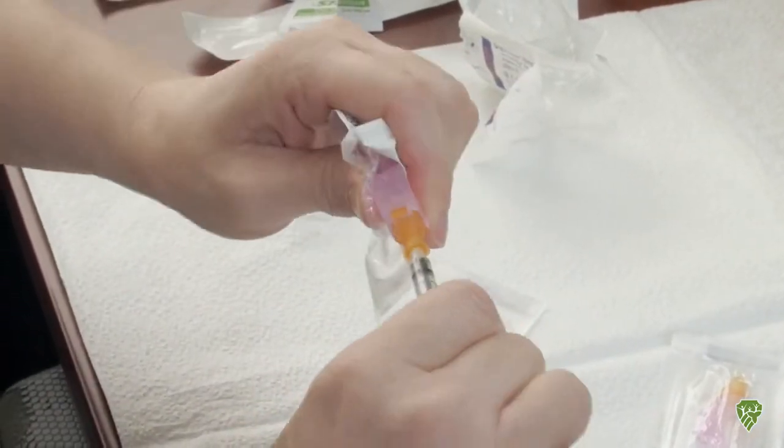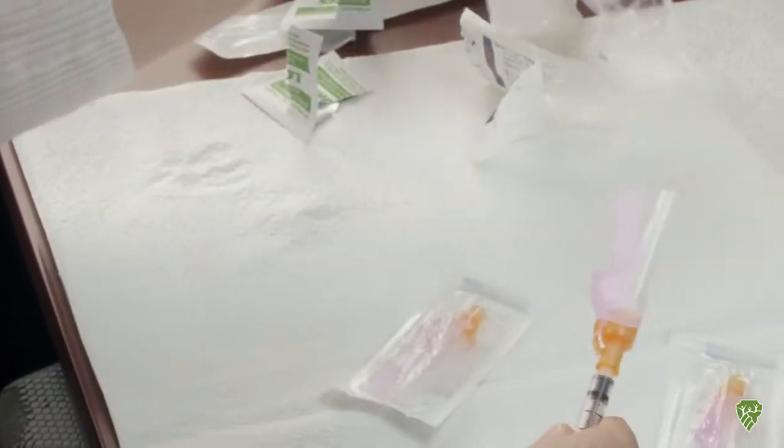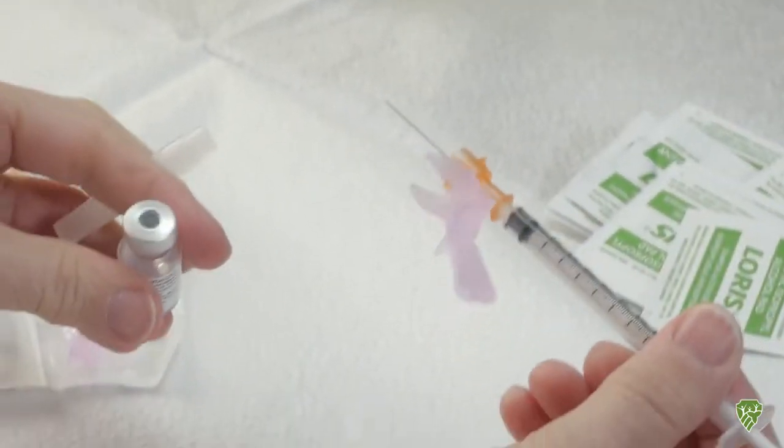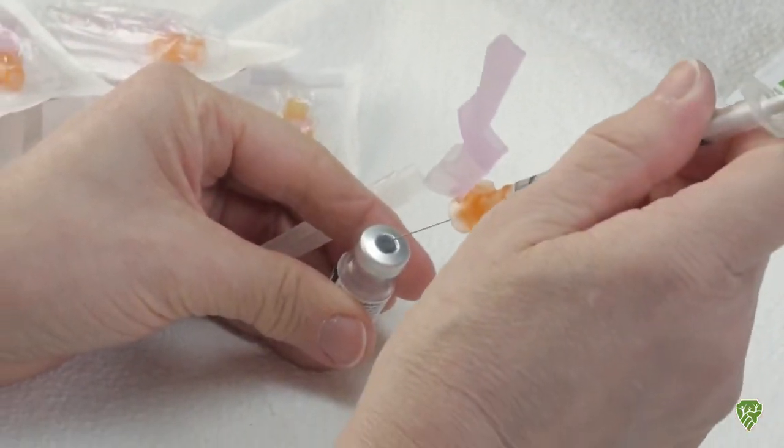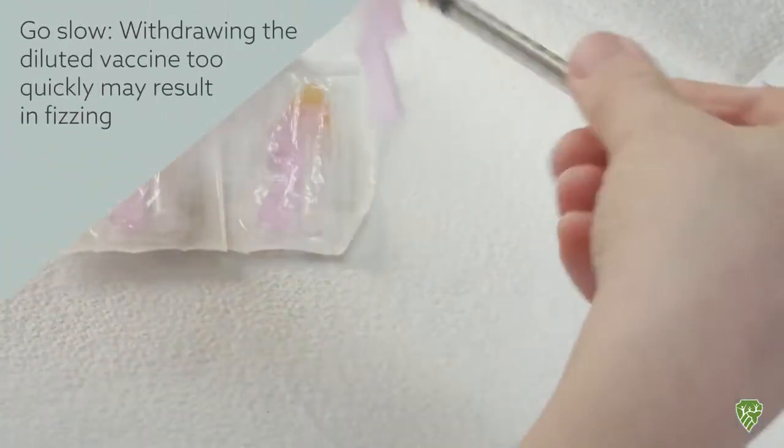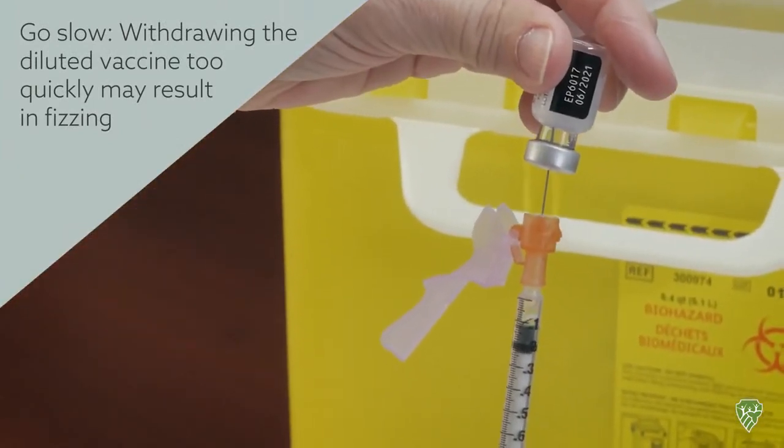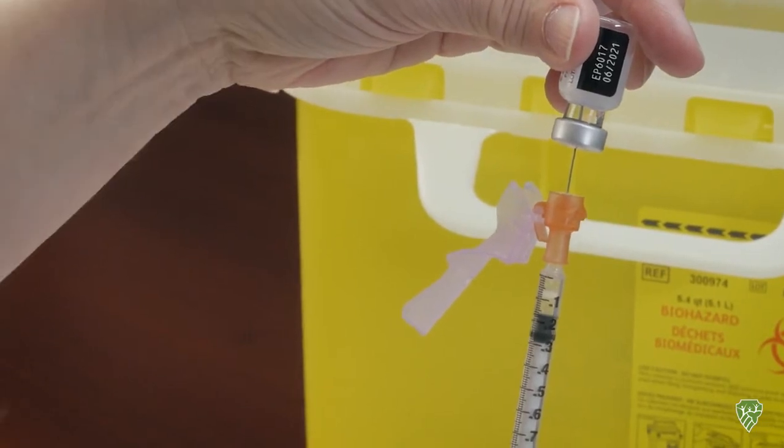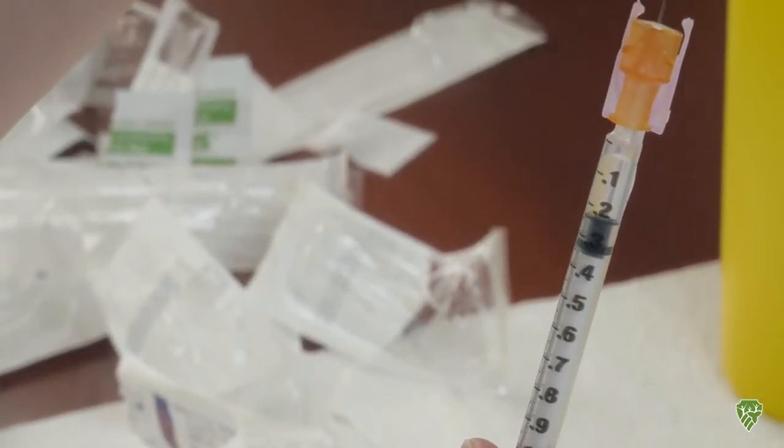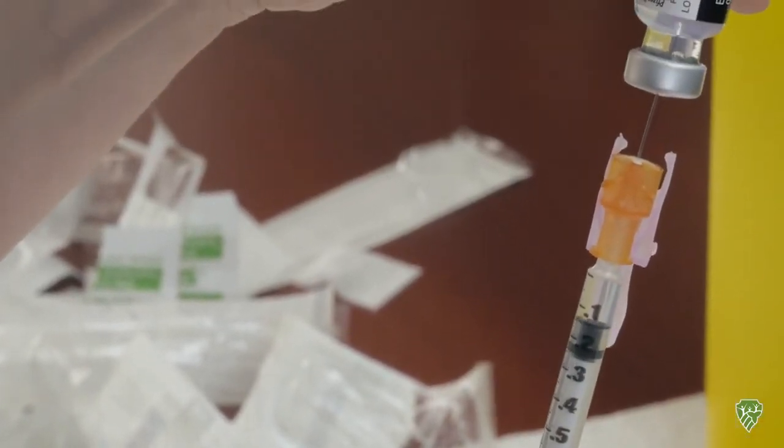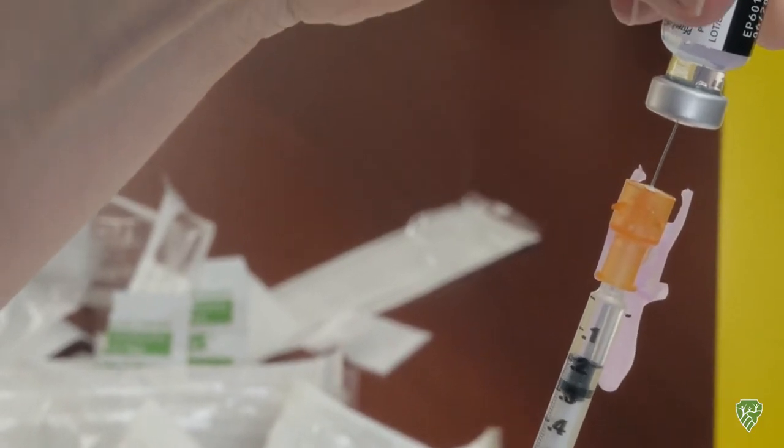And making sure the syringe is secure, I will draw up the 0.3 milliliter dose, and then pushing back any air.